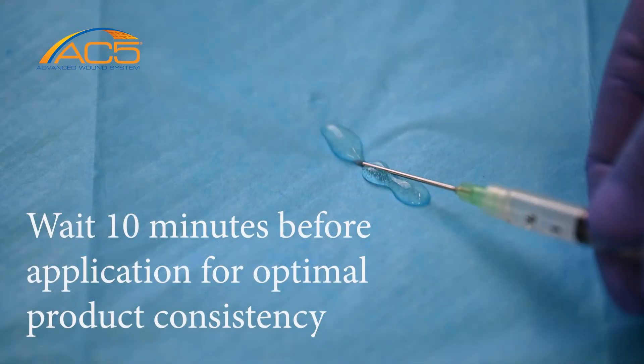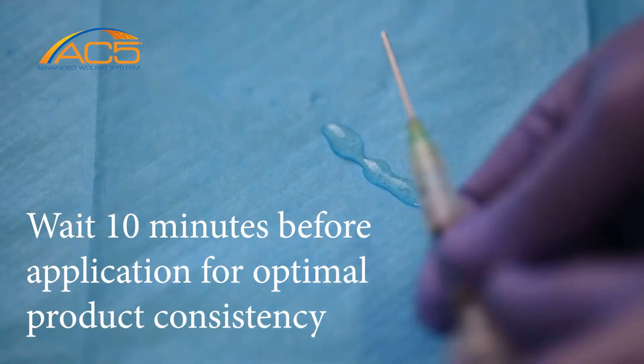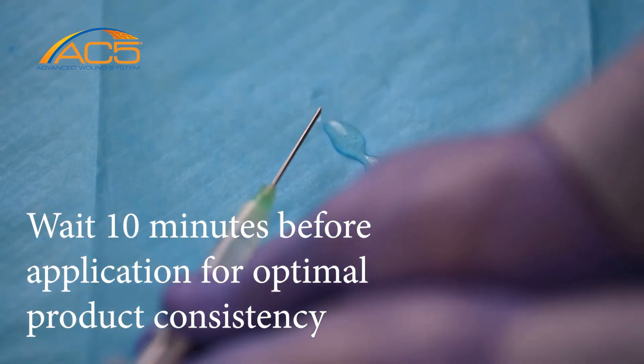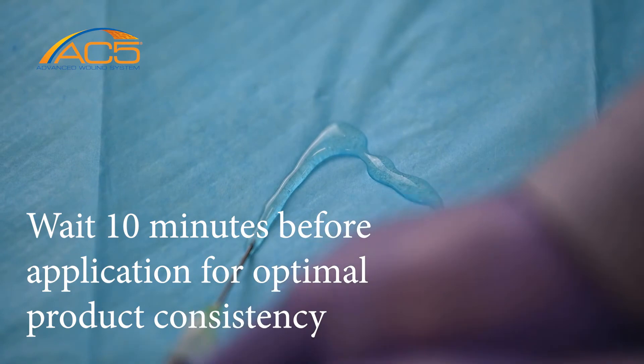It is typically best to wait 10 minutes before application for optimal product consistency.